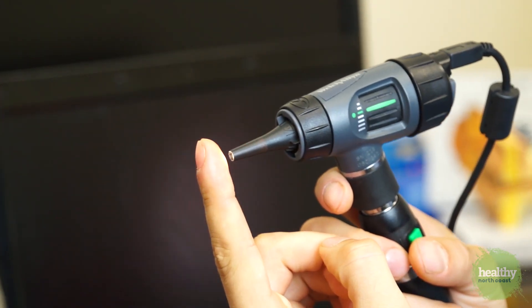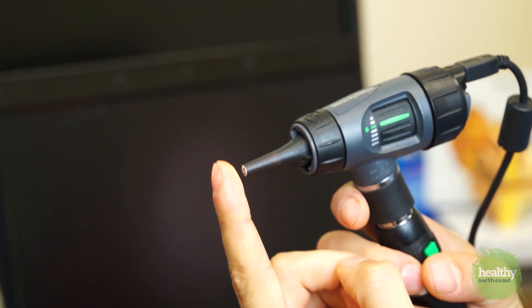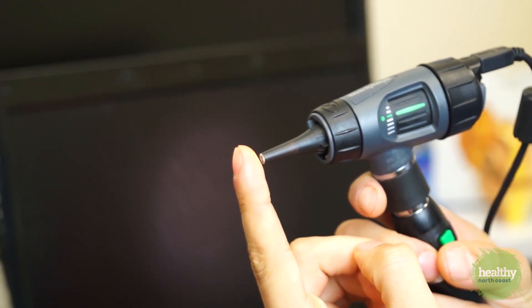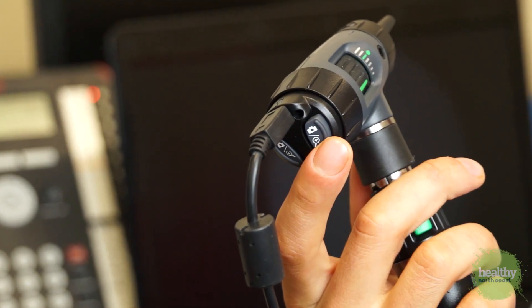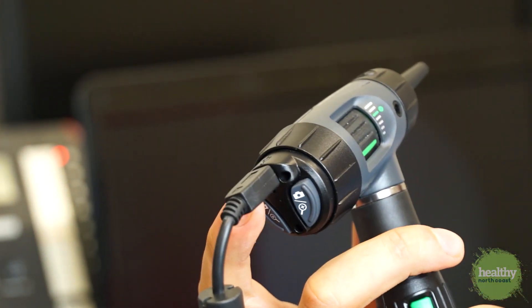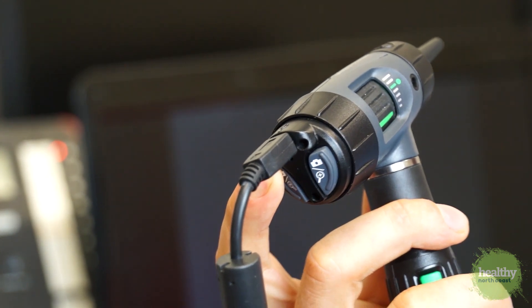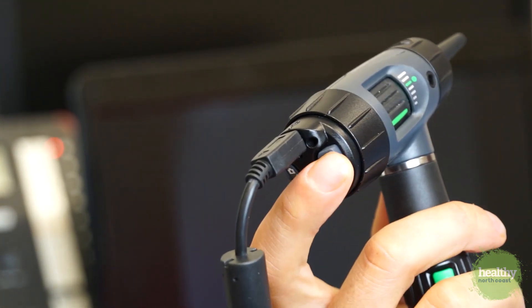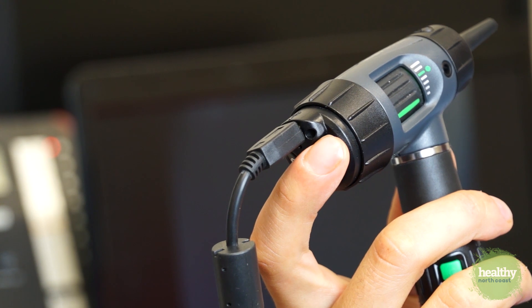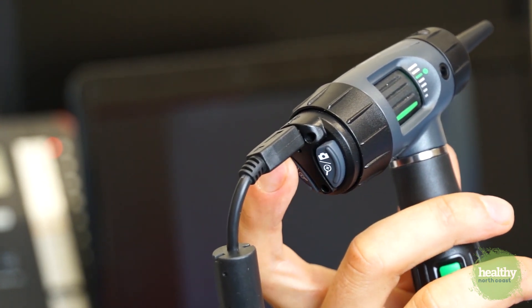The otoscope works best when you line up the green line with the green dot. I like to point the otoscope at my finger and make sure that the fingerprint comes up clearly on the screen. The third and most important feature of the otoscope is the shutter for the camera, located at the back of the otoscope with two different buttons. The camera also has a zoom feature which will amplify any area of the eardrum that you focus on.